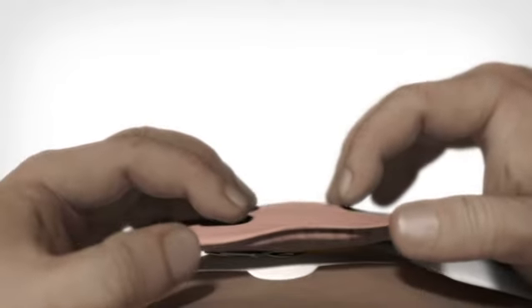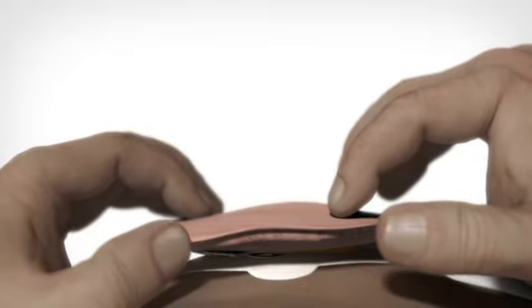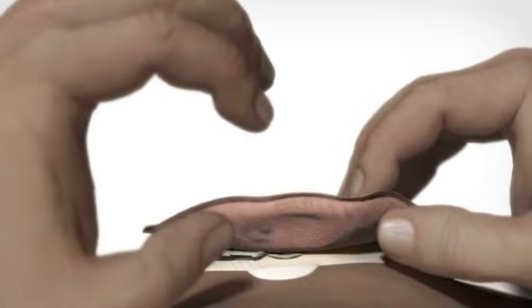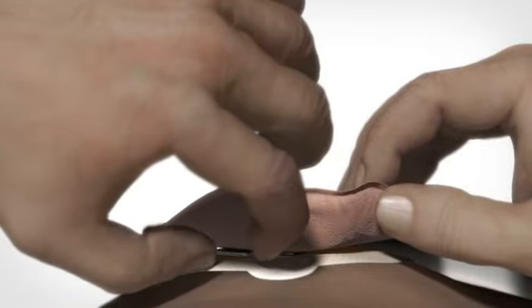The bag may be turned to its optimal position. Then close the lock ring. When you hear a click, the bag is securely locked to the base plate.